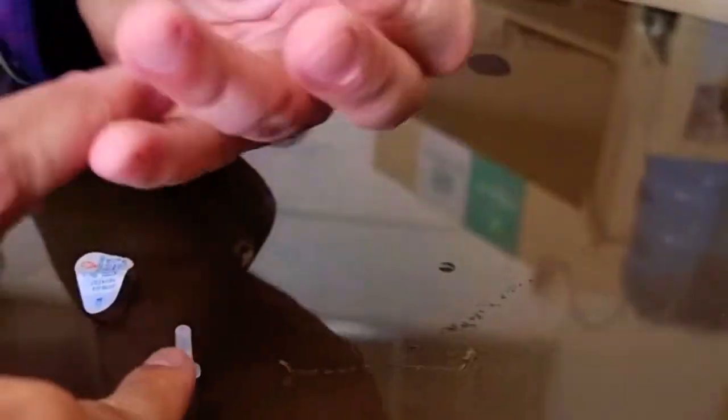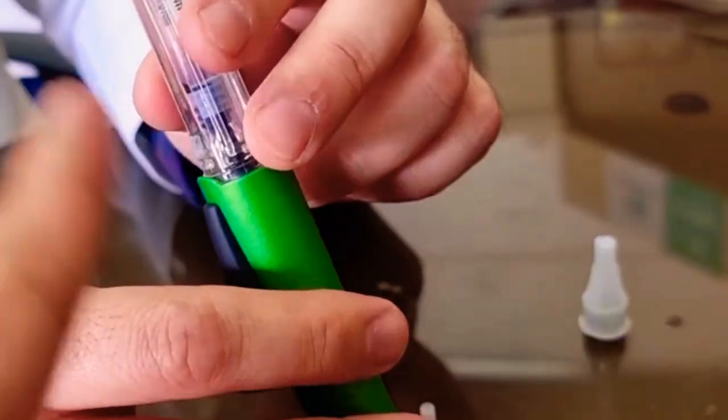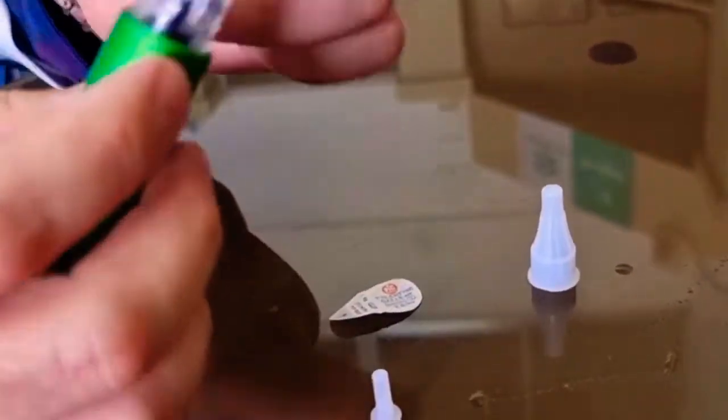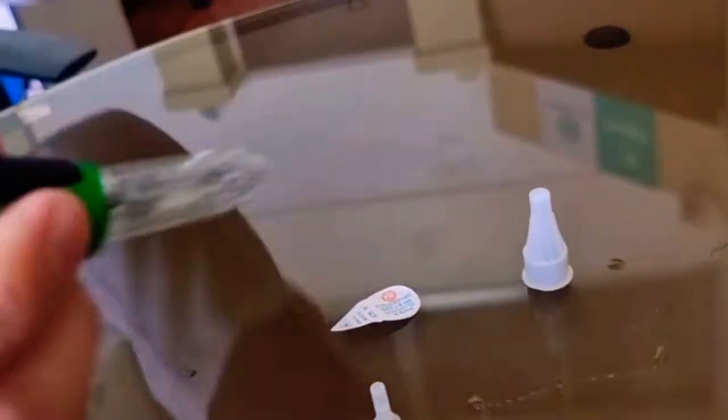This one, doctor, is the one that is used to remove that. You don't return the small one. That's for proper disposal. And you don't need to remove the medicine inside. It's already in contact and ready for use for the next time. So same as the old pen case? Yes.